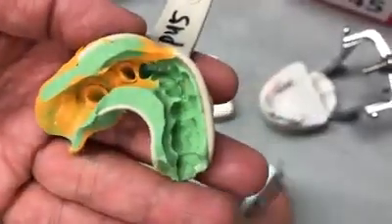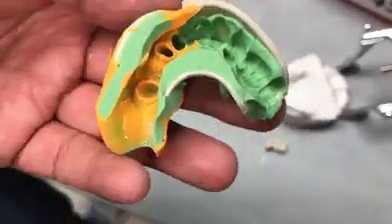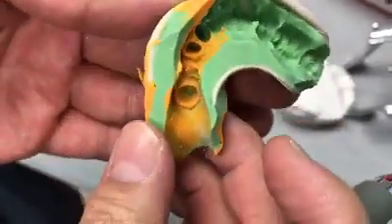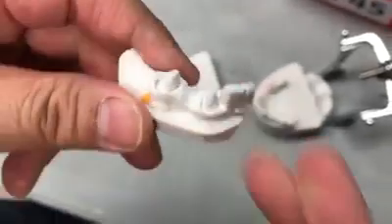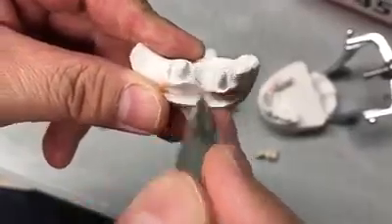This is a three-unit quality control. The first thing I look at is the tissue, especially here, which is the sub-gingival. So whenever you get the tissue, you have to look at here and there and the whole area.